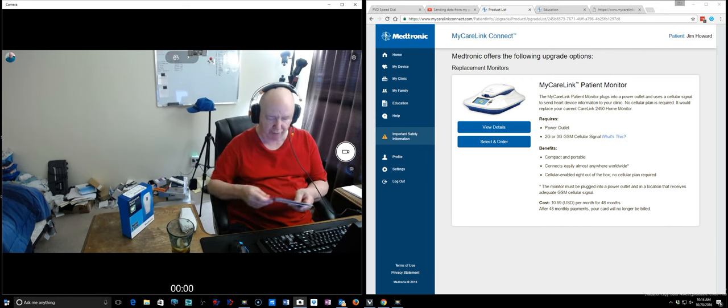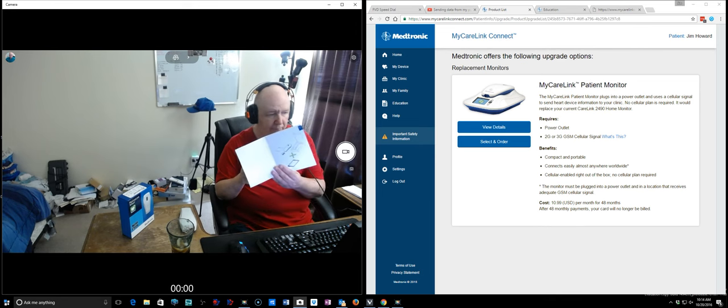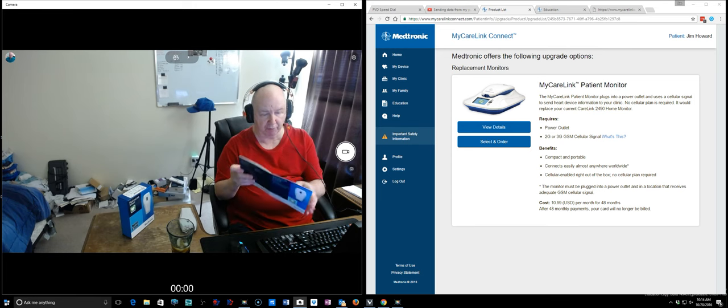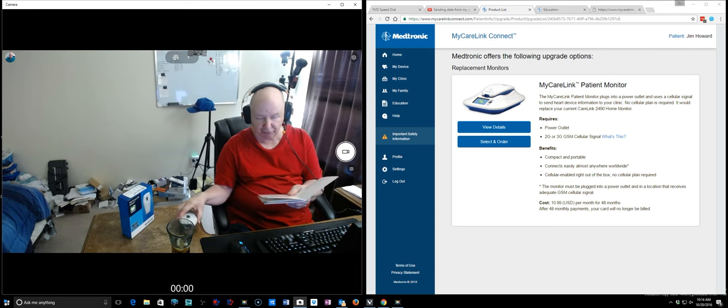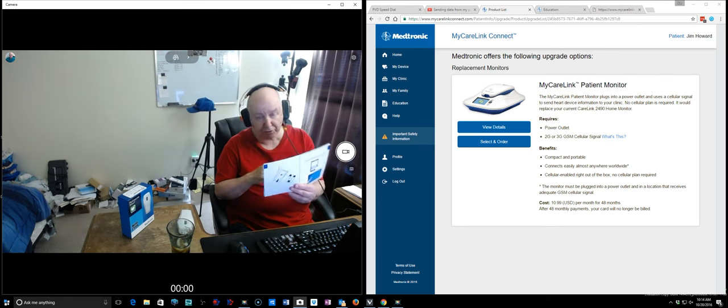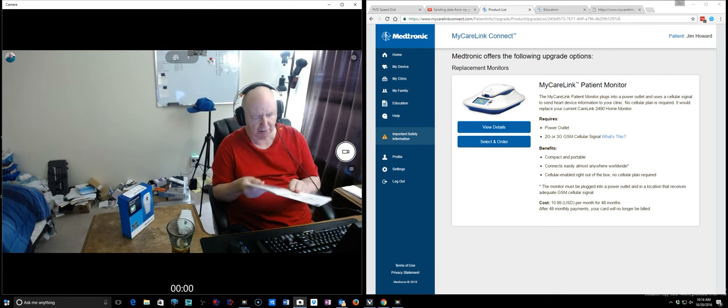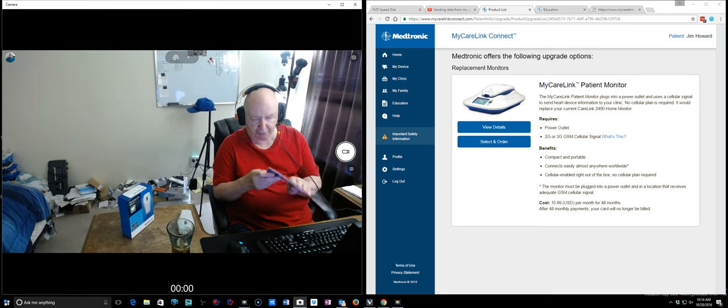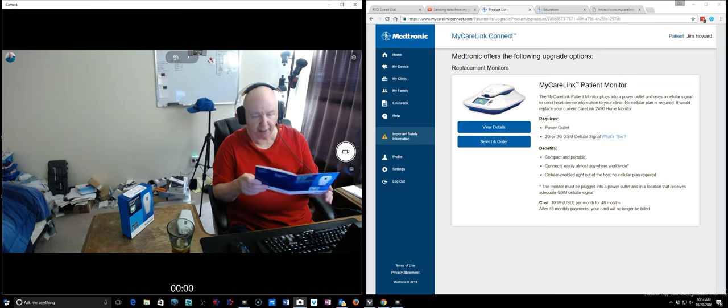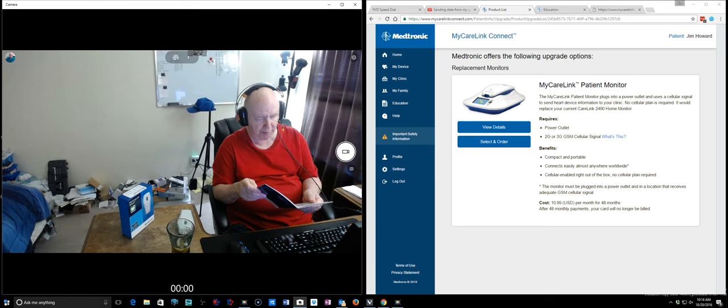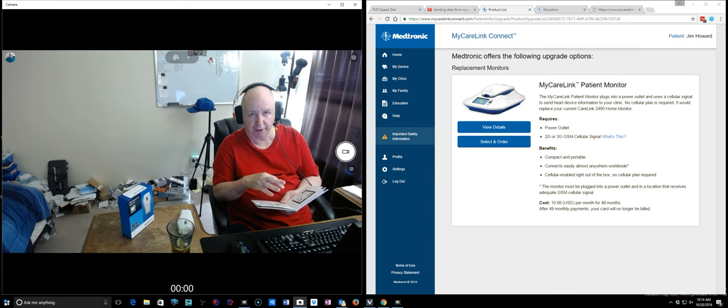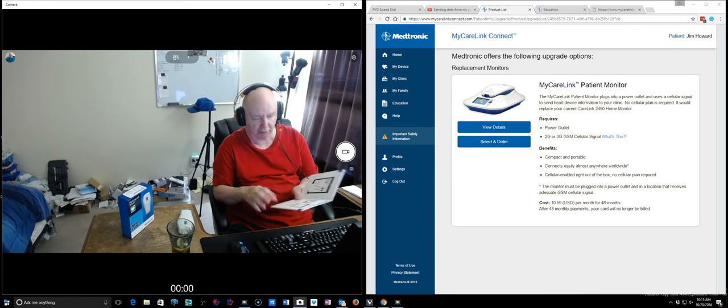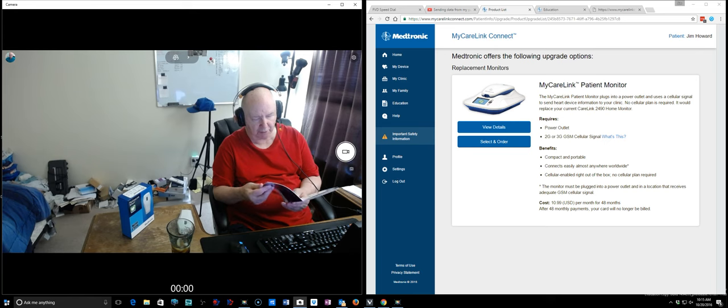It comes with this instruction, very simple instruction guide that shows you what you have to, putting the batteries. Okay, well it shows you what you need, this device, your cell phone or a tablet. Then it shows you just easily slipping the batteries in there, no trouble at all. Then it shows with your cell phone or your tablet, going to mycarelinksmart.com. And you go there and then you press the button and you download the app. And it will know whether you're using an Apple or an Android device and you'll get the correct device. It will go on your tablet or your cell phone.